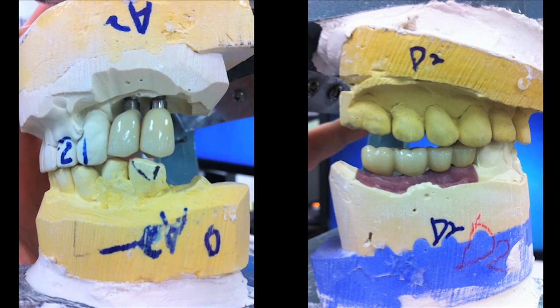Here are a couple of pictures of what happens in the laboratory when we don't have an accurate bite registration. These are both cases where the doctor tried in the restorations, and you can see that the bite was way off in the posterior. We were completely edentulous, like a Kennedy Class 1 or 2 case would be. And then the doctor sat it in the mouth, and this is what it looked like. And then he took a new bite and sent it back to us. What I'm going to share with you today is a way to avoid this so that you don't have to go through this remake scenario, and we give ourselves the best chance of having the bite either be right on or needing very minimal adjustments when we go to seat the case.